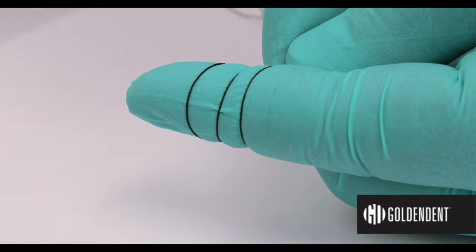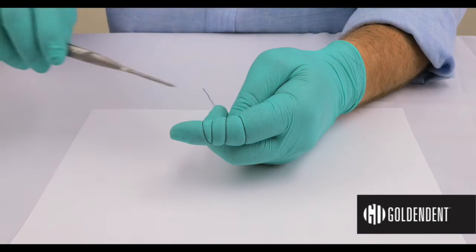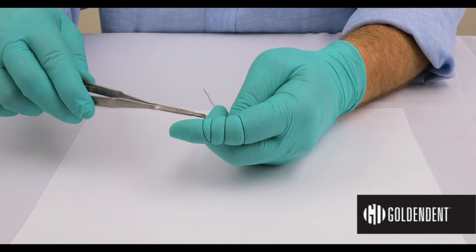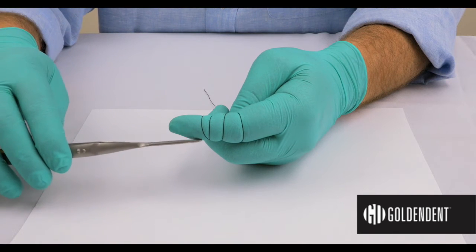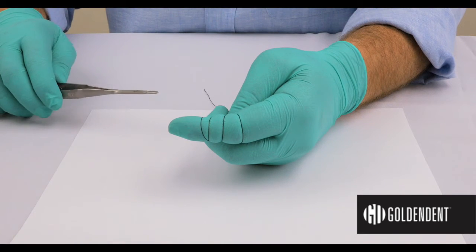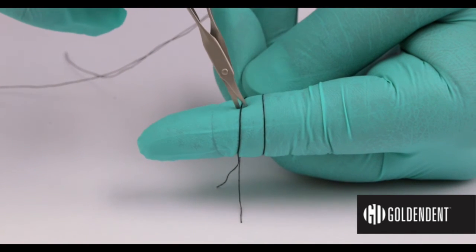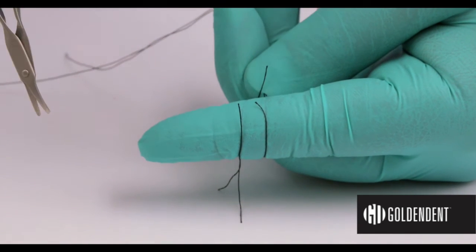The problem is that when you create space between the suture and the tissue, it may cause a laceration underneath where it can't be seen, which will lead to more discomfort, more trauma, and ultimately to an extended healing time. It closes to a ball point so that it will never harm the tissue from the tip of the scissor.